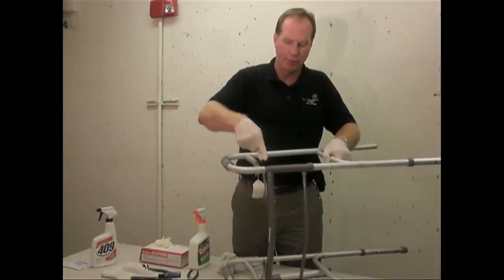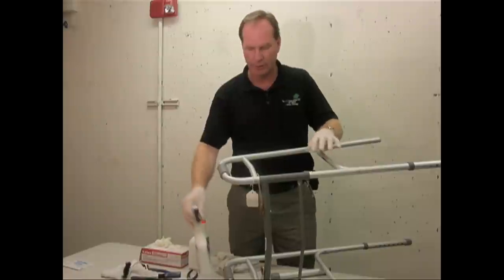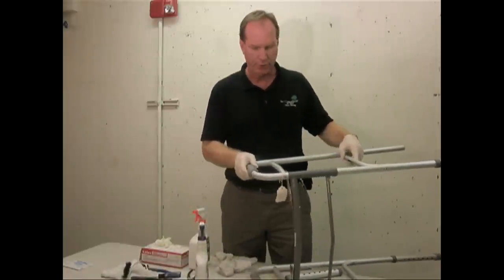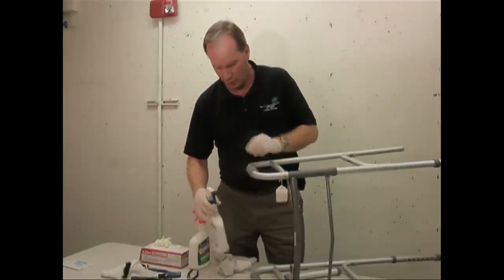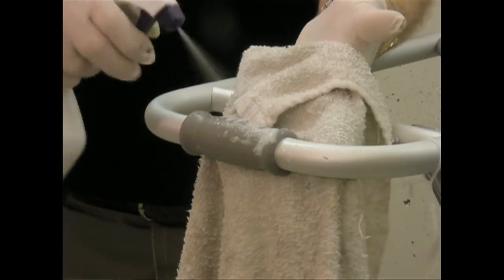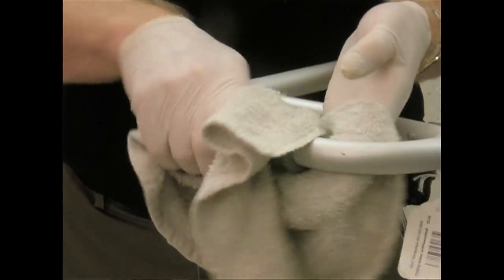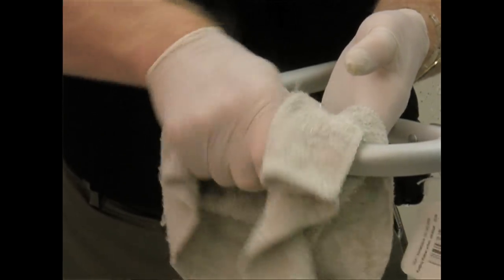You want to make sure it's as clean as possible. Be generous with the cleaning solution, especially when you get to the handles — this is where all the germs are. Be sure to spend extra time to clean the entire handle.